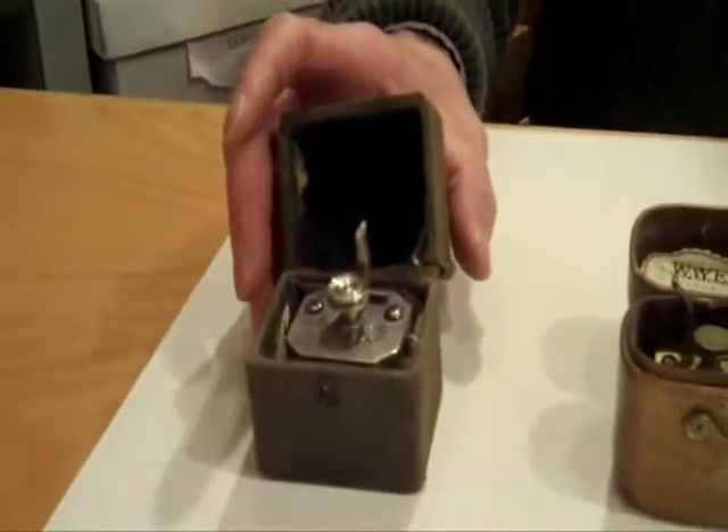I'm here with Chris Houlihan from the History of Medicine. We've got some things on the table here and I want you to tell us a little bit about them. Well, all these little objects that you see here are called scarificators.